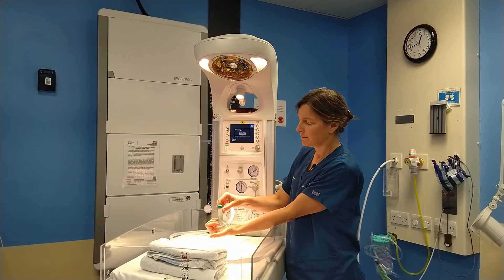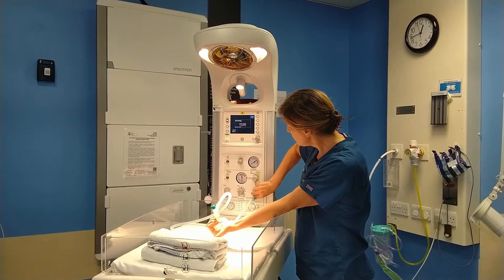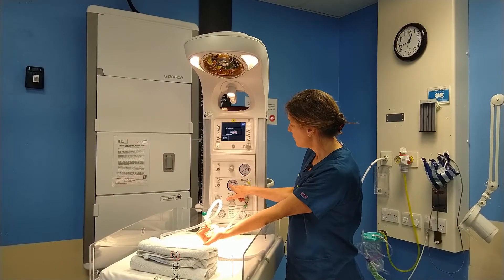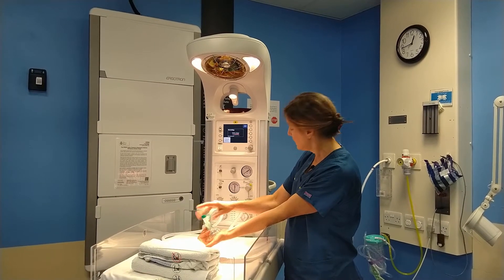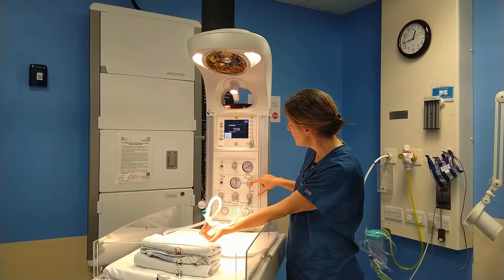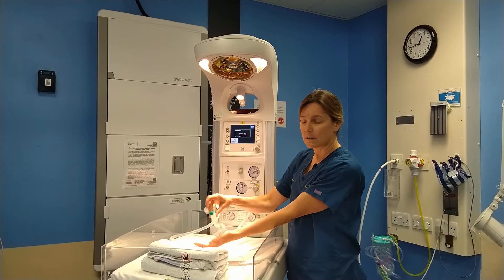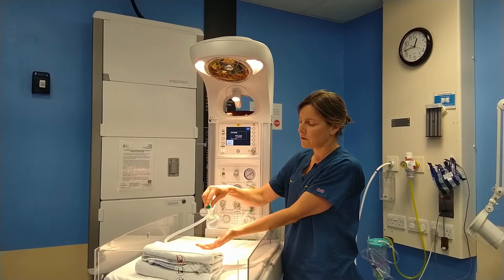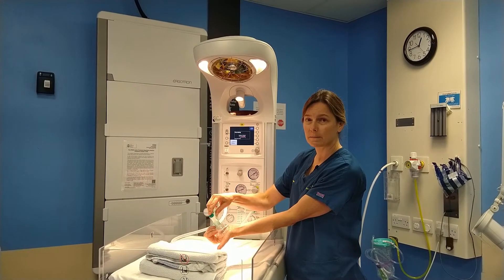If you occlude and you deliver breaths, you just have to turn up the flow of oxygen here and watch this dial to see how much inspiratory pressure and PEEP you're delivering. The inspiratory pressure can be dialed down using this valve here, and PEEP can be dialed up clockwise or down counterclockwise using the green dial on the top of the mask.